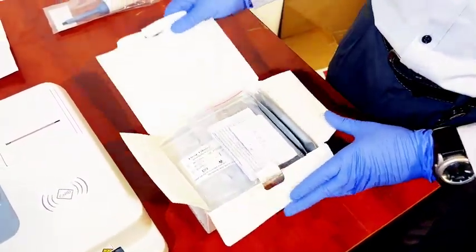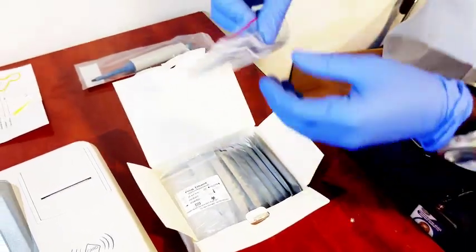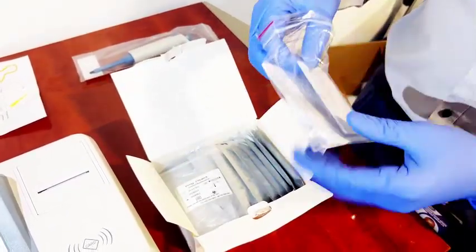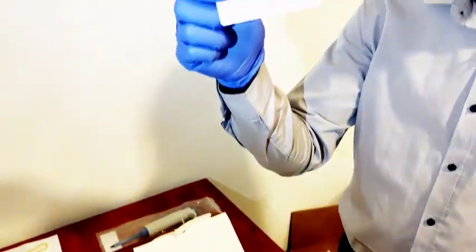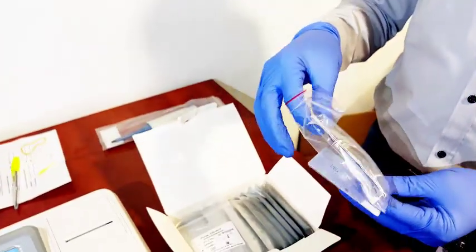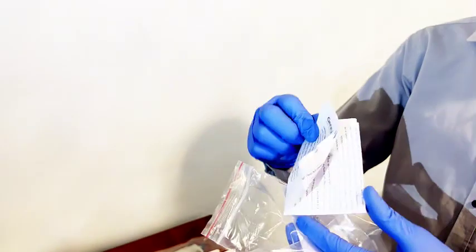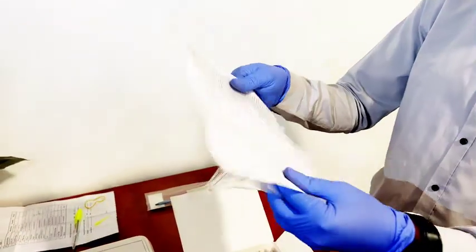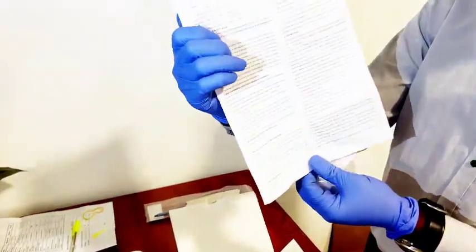This is a card — the reagent card with its lot number. It is the reagent test guide. The next stage is how we program the reagent, in the same way specifying the flow, the volume, and the sample volume to be used.